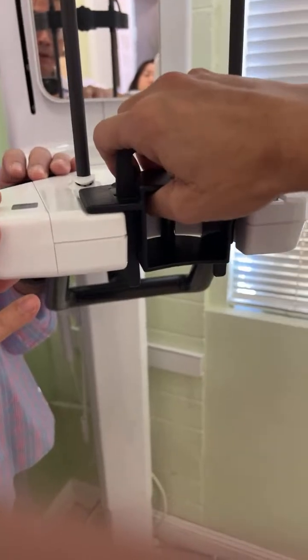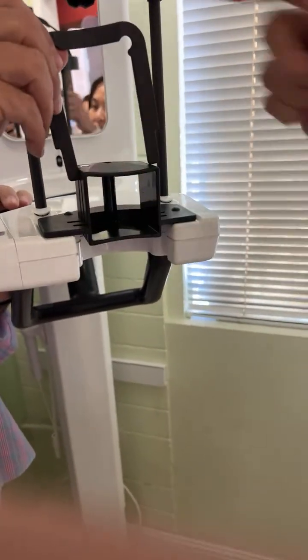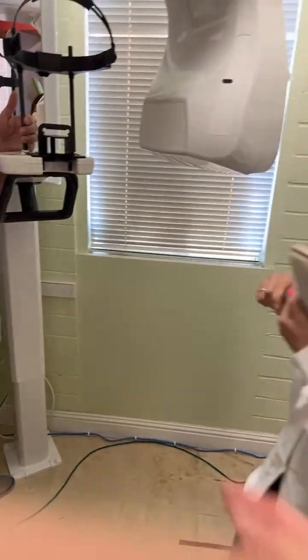But what about if I do the lower? Go ahead, take it out. Lower, then lift it up. The only maxillary in the other position. Do we still need this? Yes. And then how do you rest them in here?